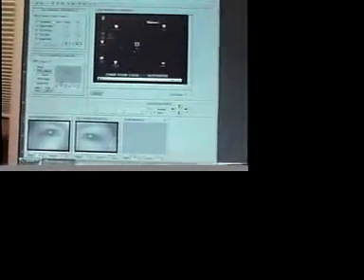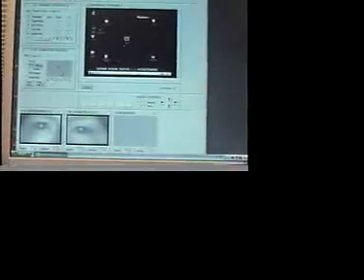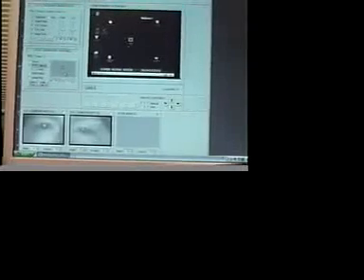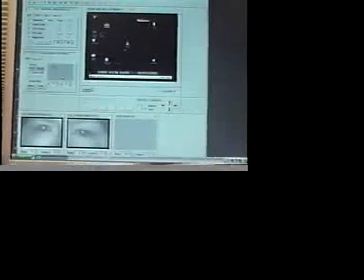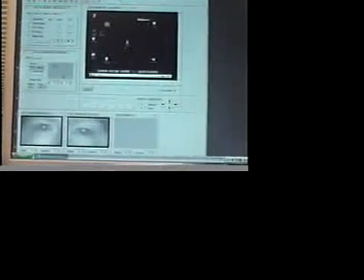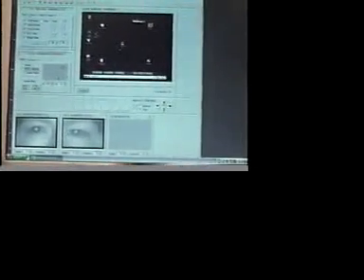Here's my calibration screen. We'll take a look at that. And I'm going to tell Pat, I'm going to reset POR calibrate. I'm going to tell Pat to look at the center icon. And you see how I've lined up the cursor over the center icon. So I'm just going to try to get all this in more, and I'm going to right click inside this gray box, inside the calibration box. So look at the center Pat, upper left, upper right, lower left, and lower right.